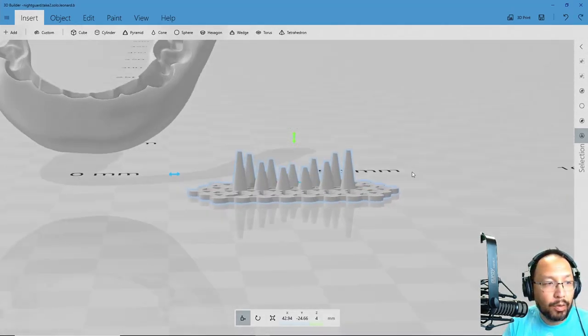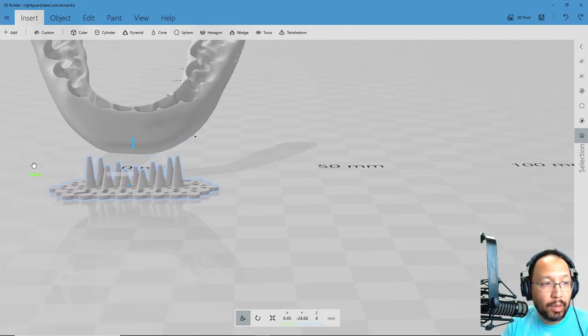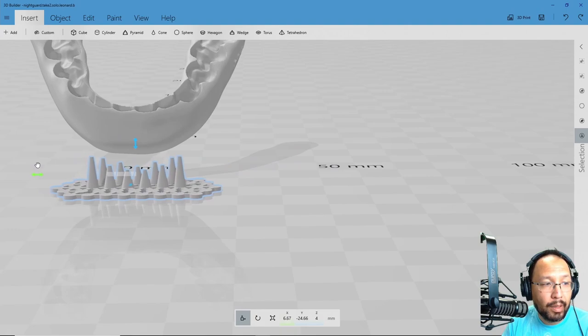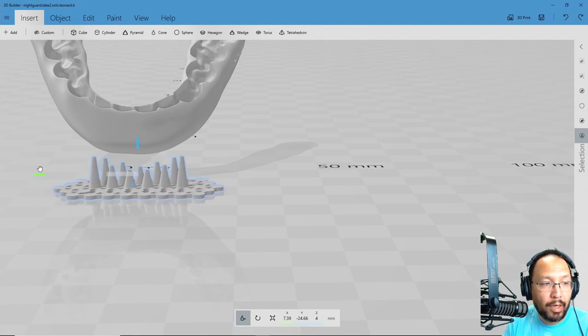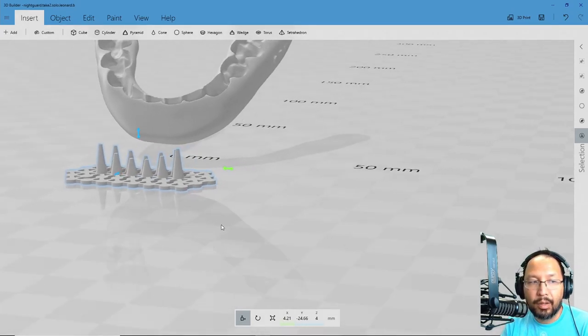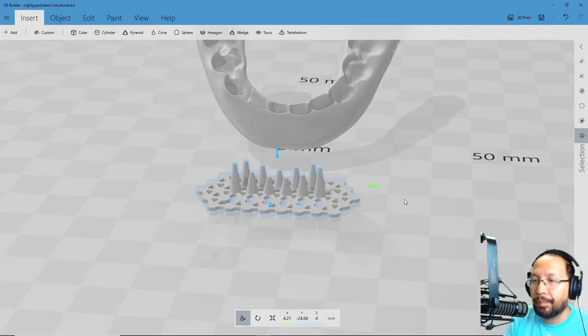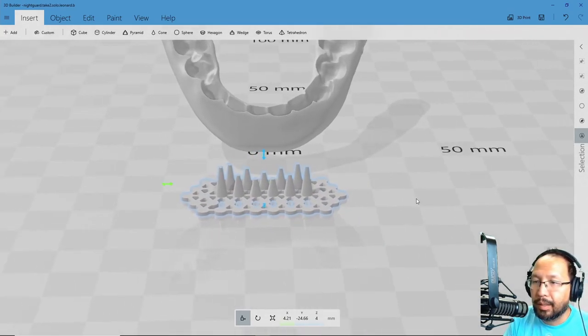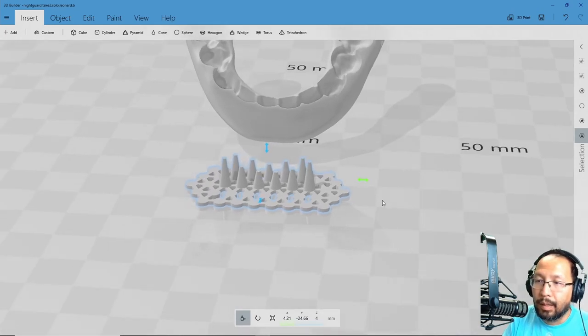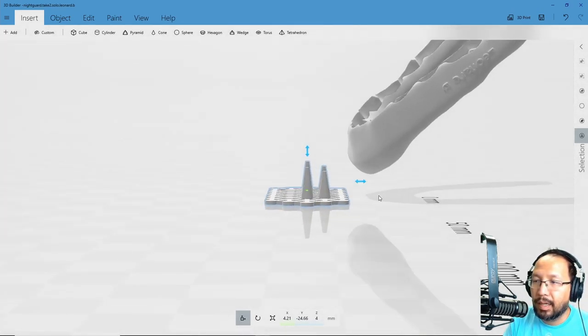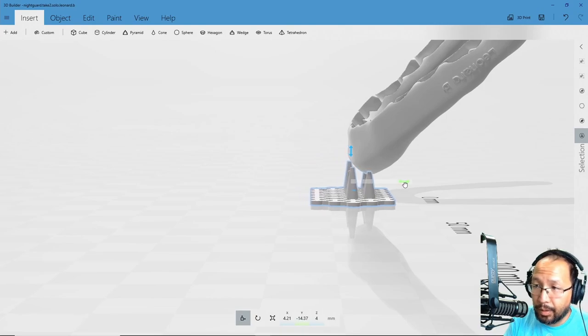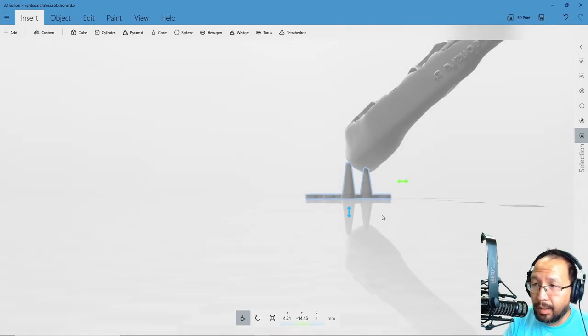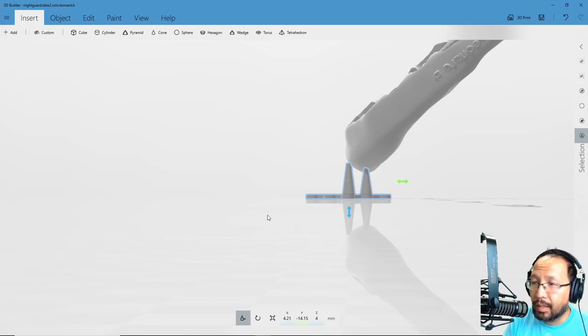I'm going to go ahead and overlay it onto the model. So I'm going to use the arrows here. We're going to center it with the other one. If you are careful, you will notice that it snaps right when it hits the center of the other model. There'll be a little stutter. So left button rotates, right button in 3D Builder translates. Now I'm going to look at it from the side view here. And what I'm going to do now is slide it until the Crayola crayon is right in the middle of the bottom of the model. You can see there the lowest tangent of the model is right there. So we want to center our spike right there. That way we get minimum print defects.